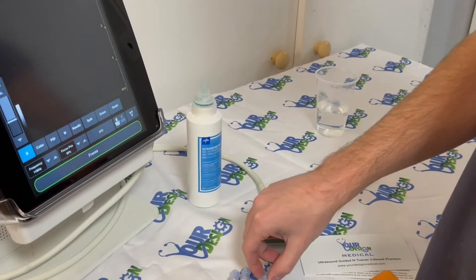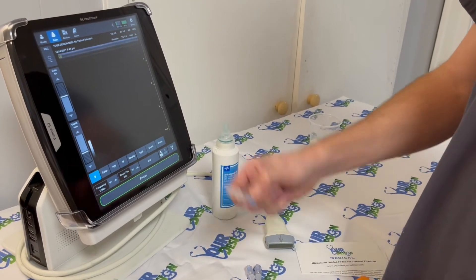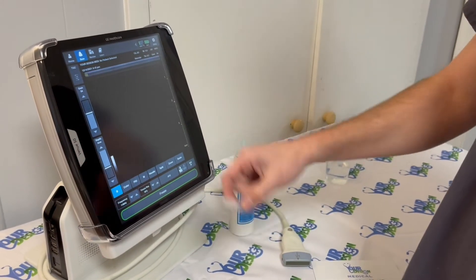Included also are fittings. This one is a complete seal, and this one's seal breaks and opens when you connect to a syringe or IV tubing.